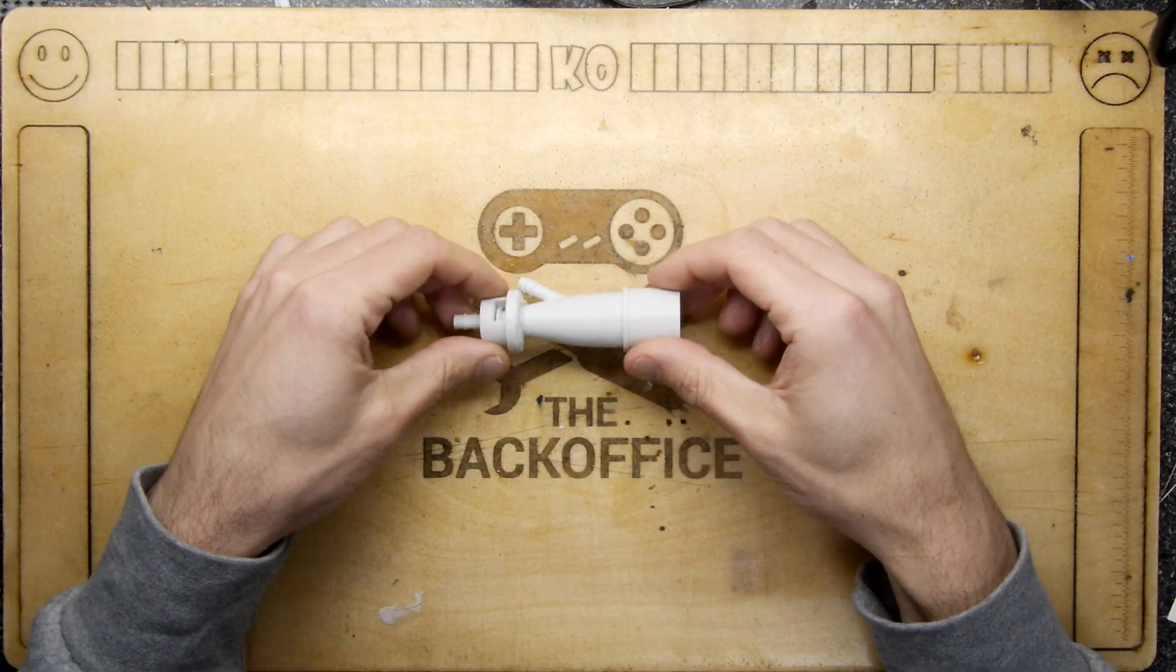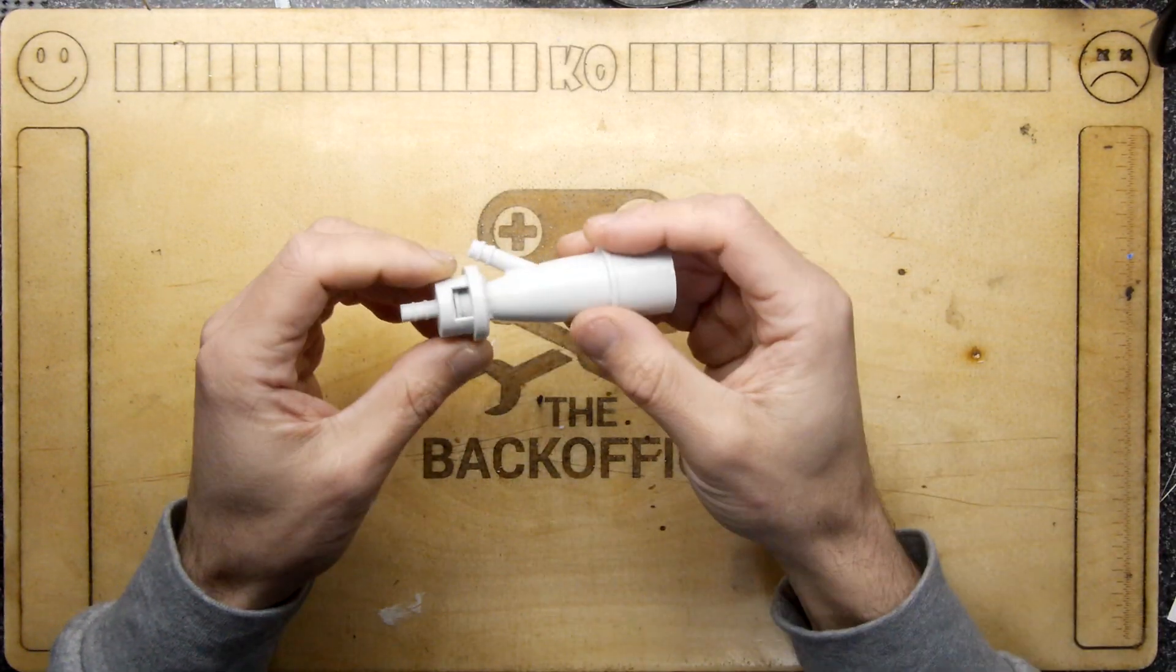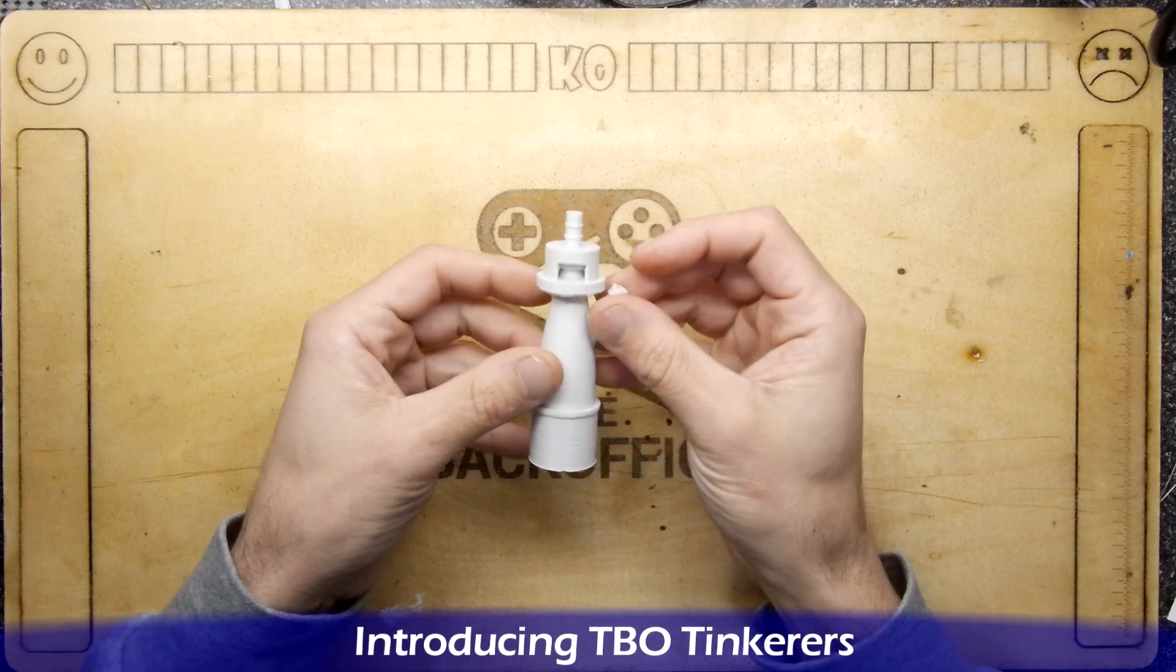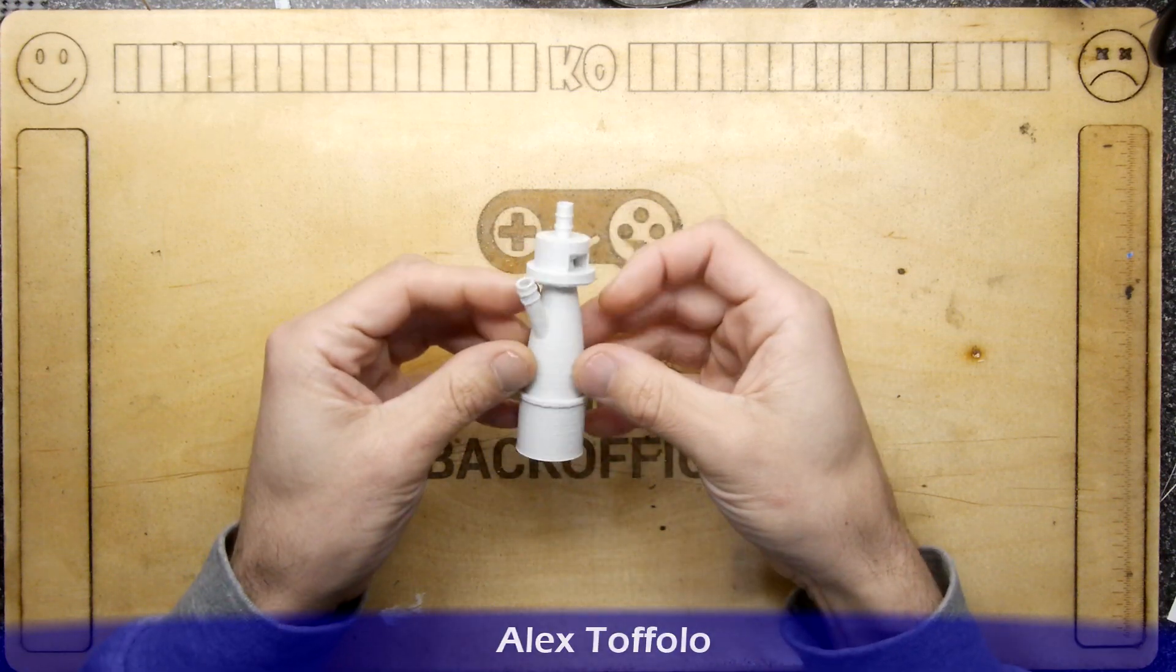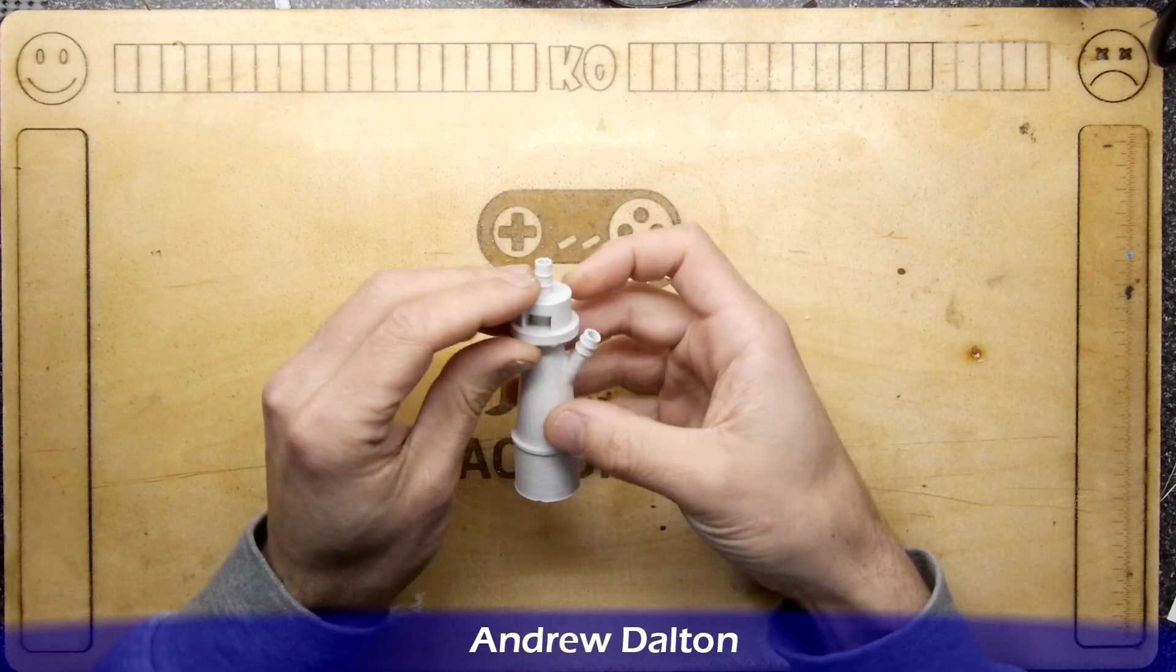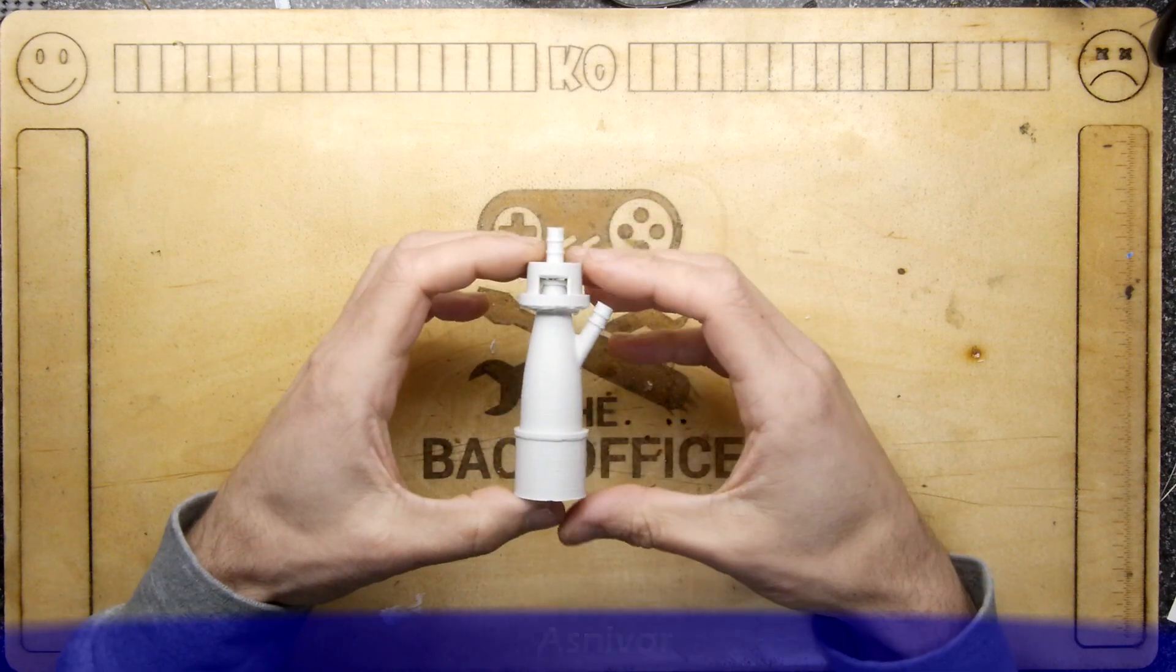Hi, Mandra Armstrong, and welcome to the Back Office Teardown Lab. You might recognize this - it's the item that's been on the news recently as part of the COVID-19 coronavirus outbreak.